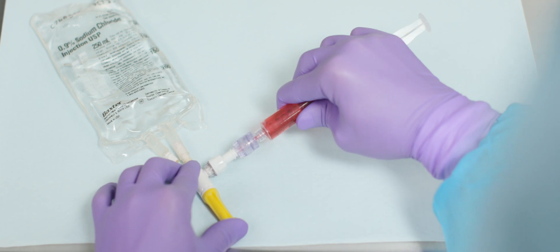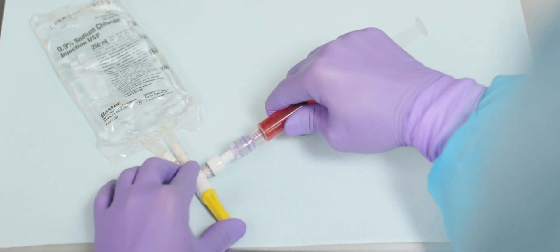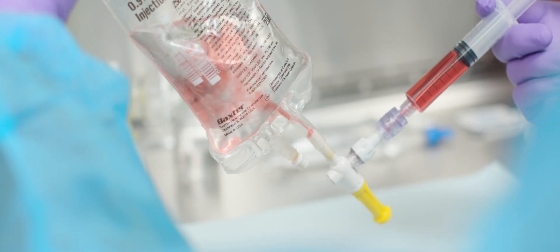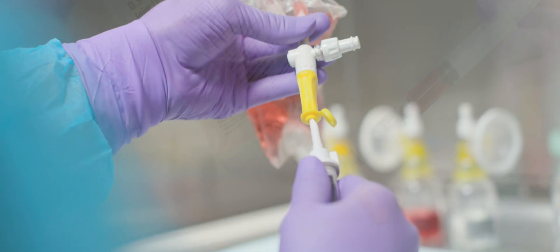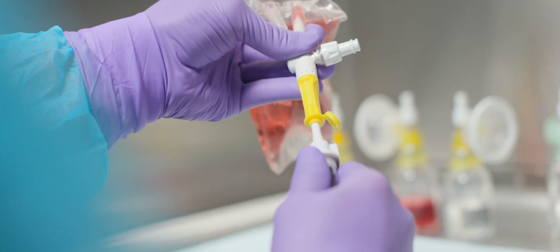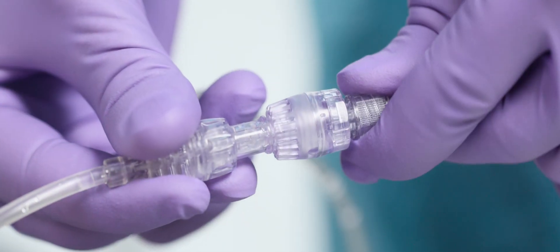Using the Air Assure dry spike, you can easily transfer a dose into a bag or semi-rigid container. An IV set can then be securely attached into the dry spike for a simple and safe infusion.